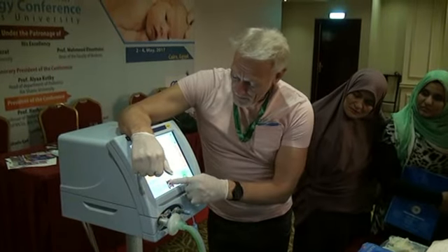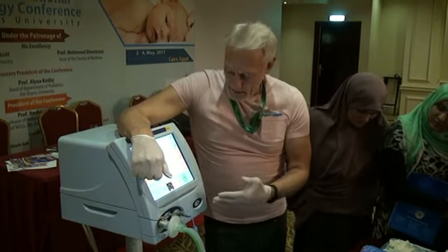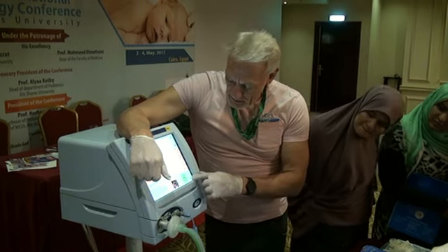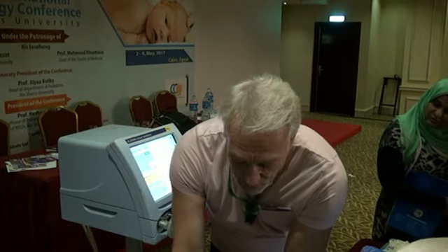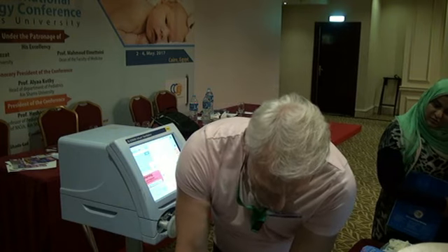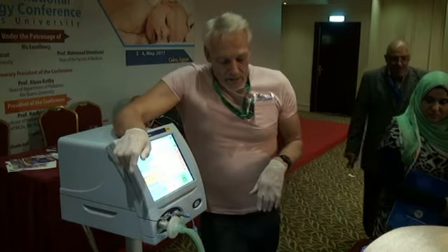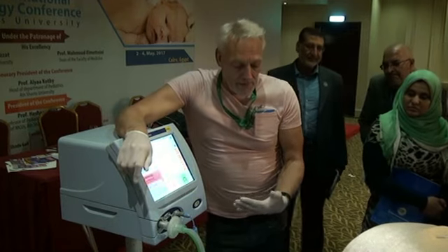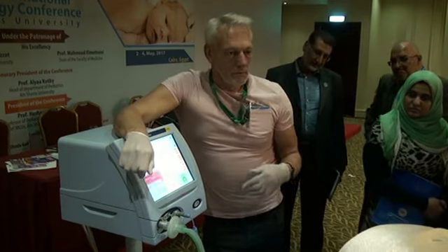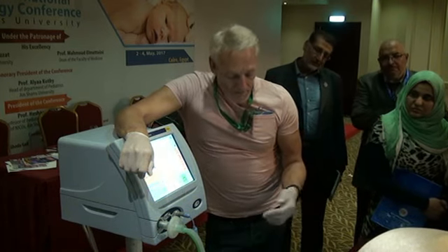But it's also, if I have the wrong ventilator settings and I just didn't have my lungs very well inflated, but at the same time I still wanted to do suction because there were a lot of secretions, and I hadn't yet optimized my baby, and I'm starting my suction and I'm reconnecting. If you were never on the right settings and you were still working your baby up, it takes even longer. This is a nice compliant lung, to get ready or to get better.